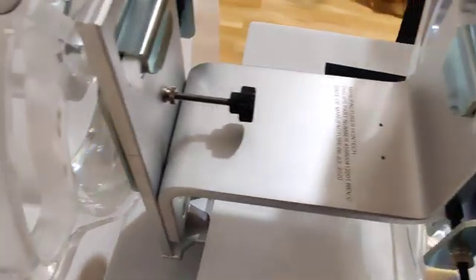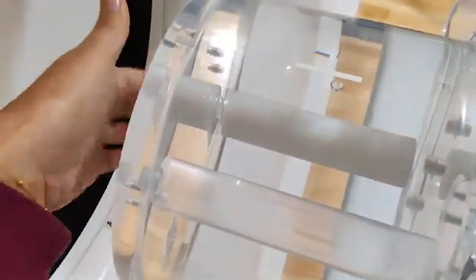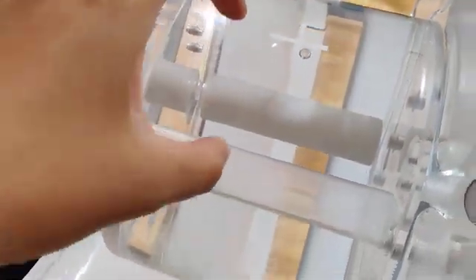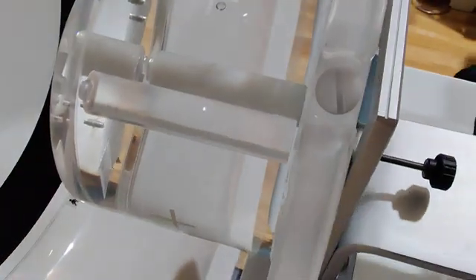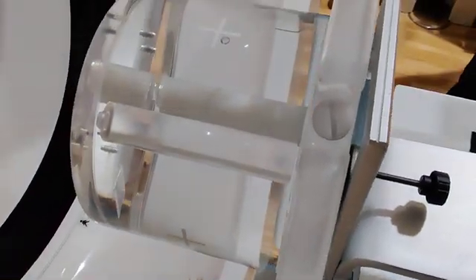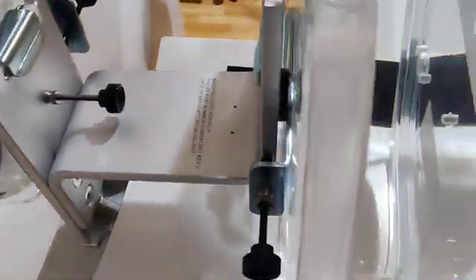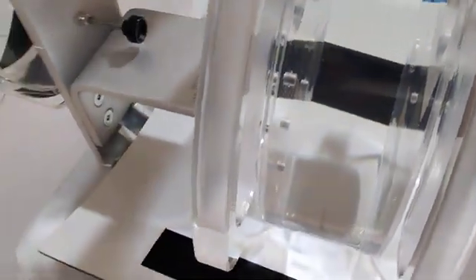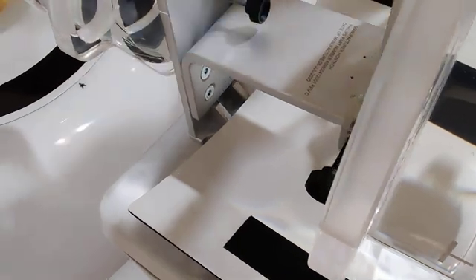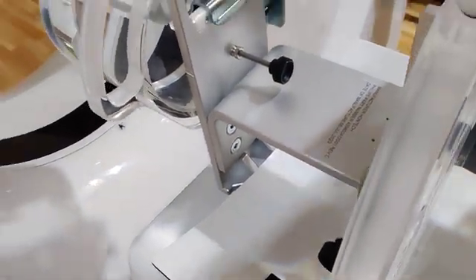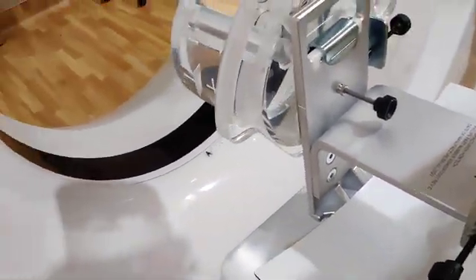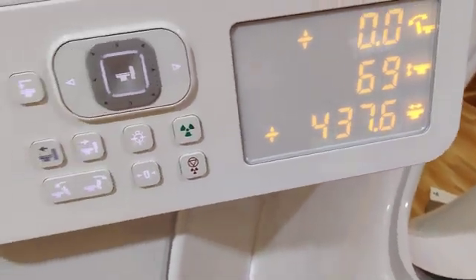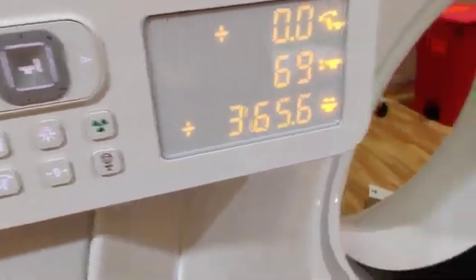Oh wow, okay. Yeah, so this is for image quality, spatial resolution. There's a difference - there's wires in there, and then this one has these tubes. I can see where somebody might grab that one. I just don't want them to be confused.